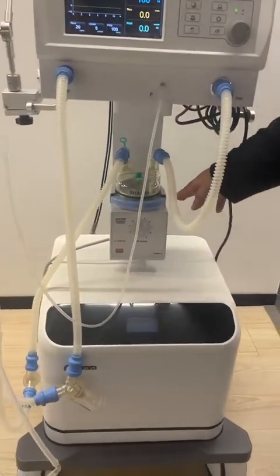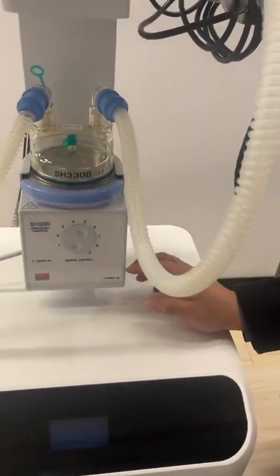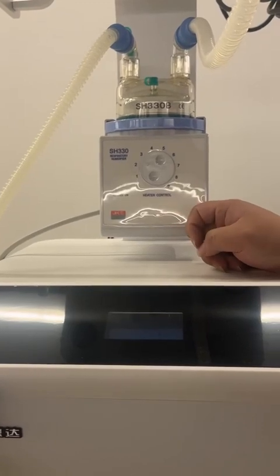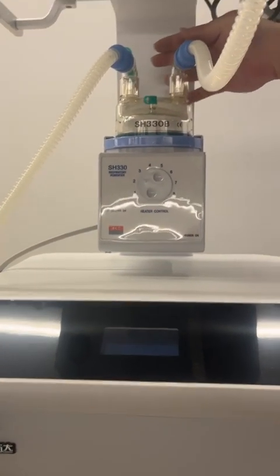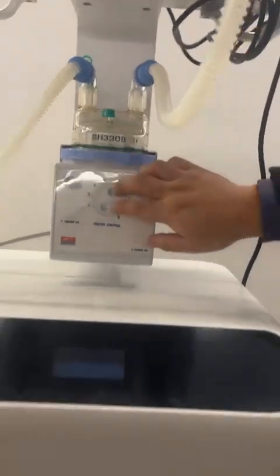And then we will see about the humidifier part. For the humidifier, actually we have 3 kinds of options. And here, this one is the first type. You can see there is no screen on the main interface, but by this port, we will insert a thermometer. And the doctors can check by the thermometer to know what temperature the humidifier is giving now. And the settings are very easy.